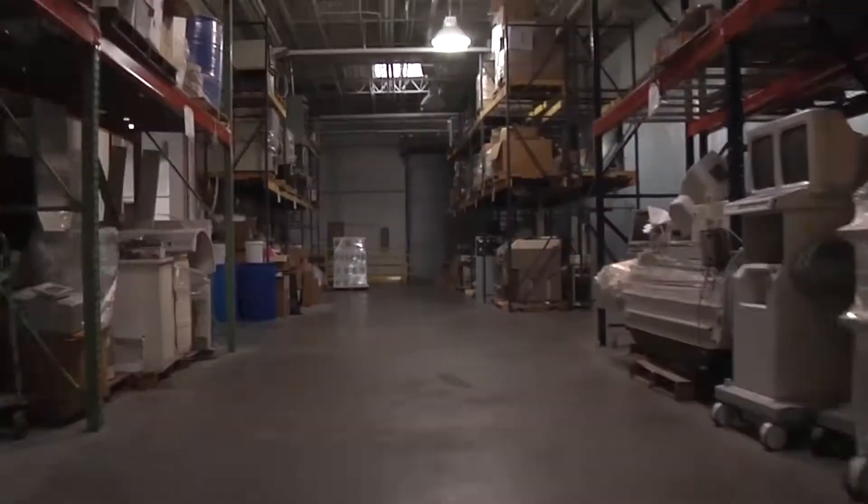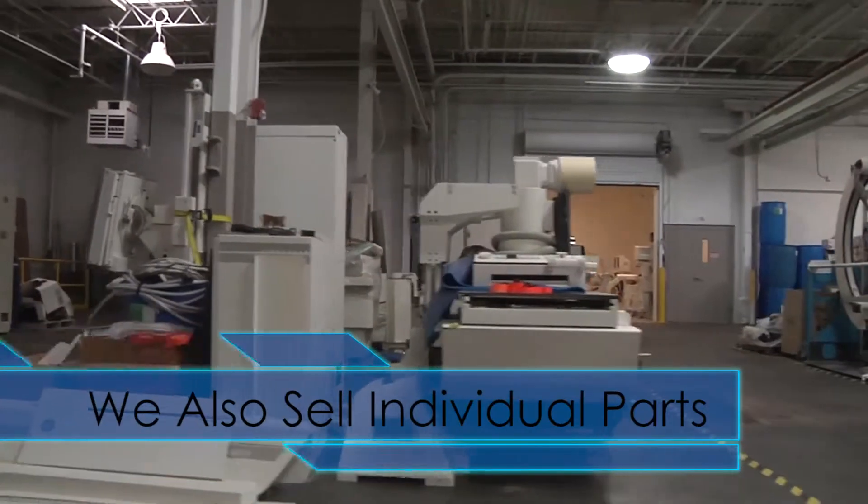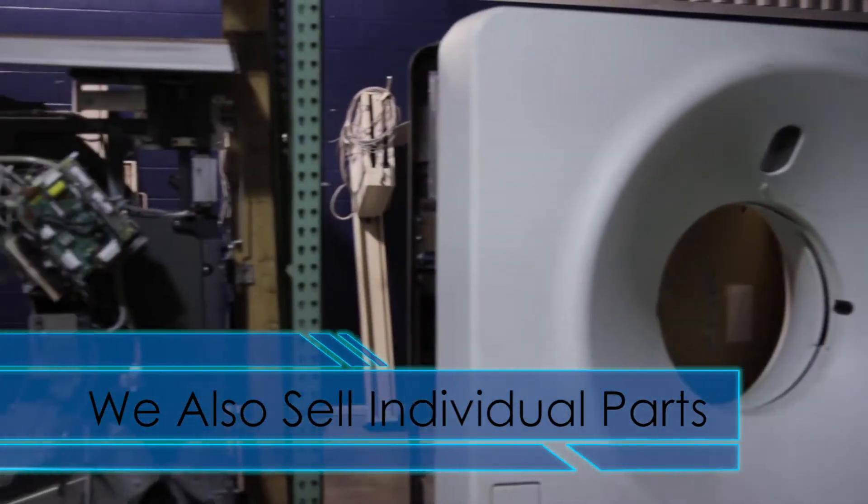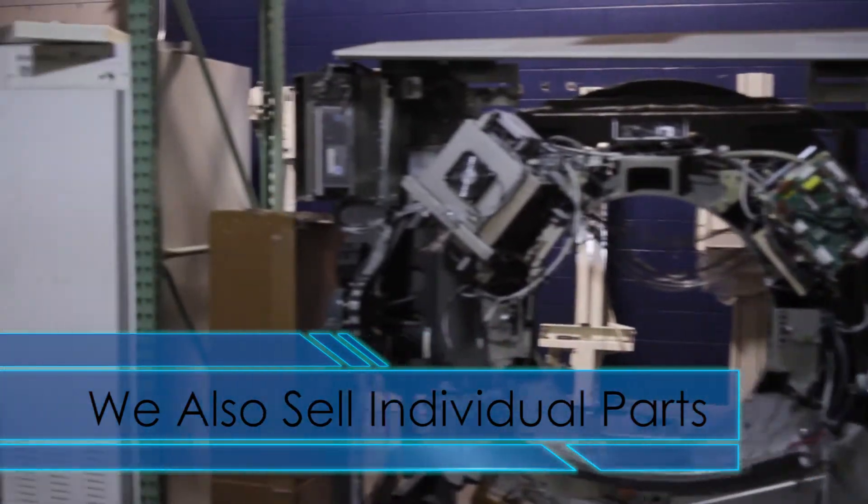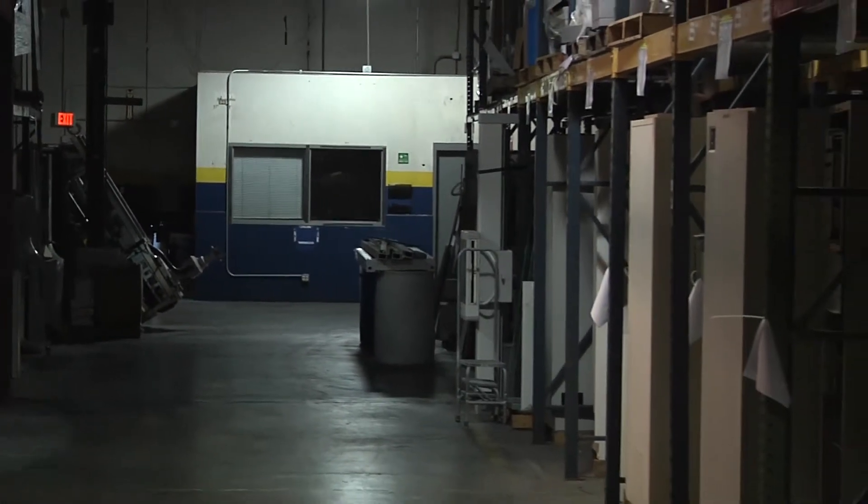The size of our facility allows us to offer some other valuable services as well. RADSource has a huge inventory of systems and modalities on hand so that you can quickly get the parts that you need. We specialize in GE and Philips parts, but call us first when you need components for any RF, CT, or other modalities that you're looking for.